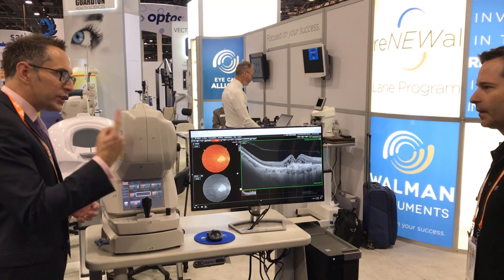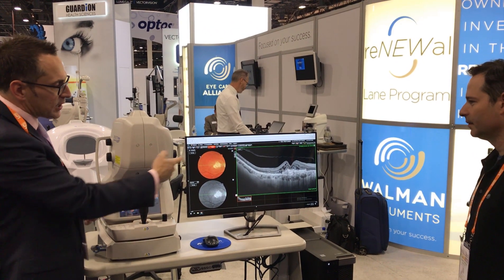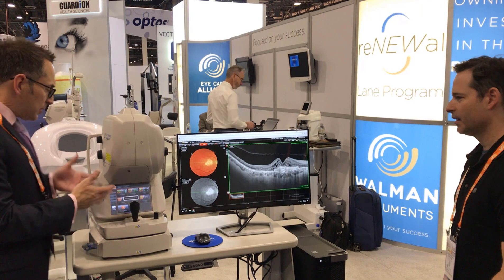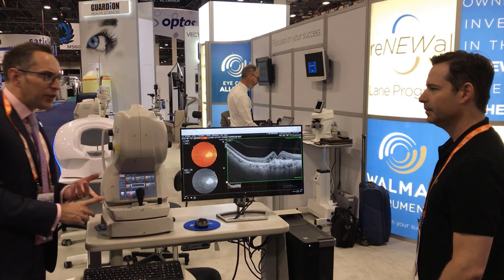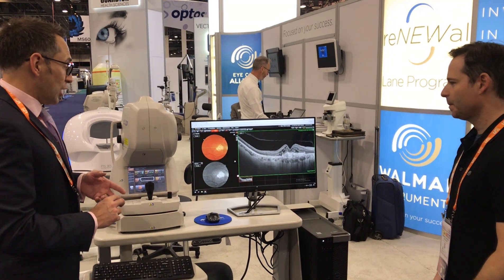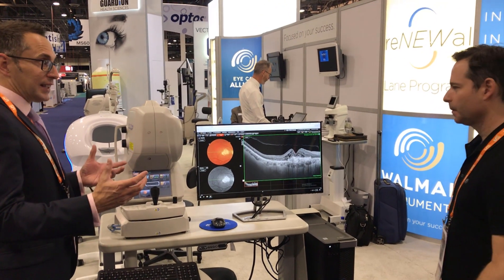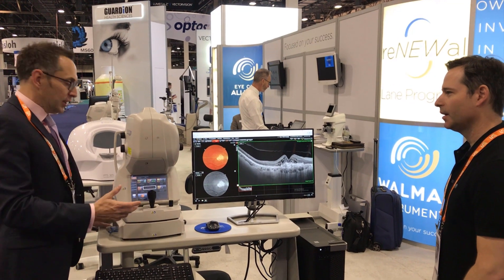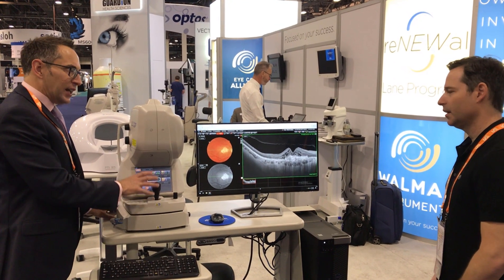We capture all of this information — image quality and the fundus image — in one second. This machine will also take fluorescent angiography and fluorescence images. So between its multimodal capability, the wide field imaging, and the penetration, this really is, as I say, a different beast.